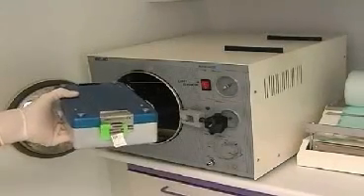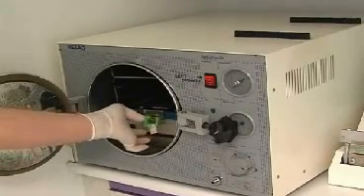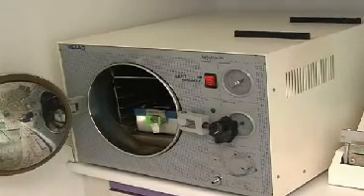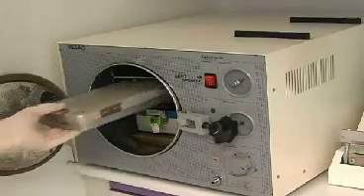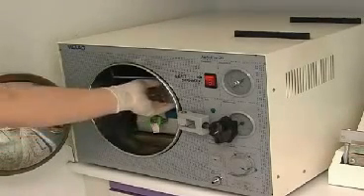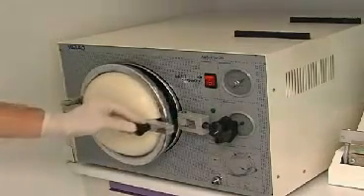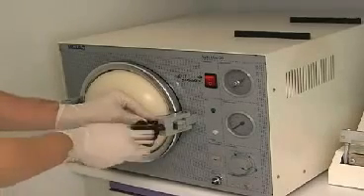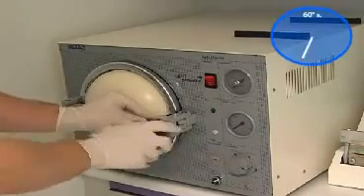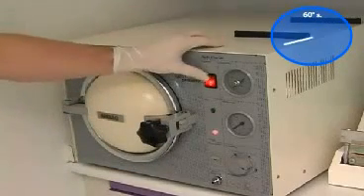Steam sterilization by heating in an autoclave is standard procedure in most hospitals and doctors' offices. You see the sterilizer being loaded with surgery containers holding sterile goods. The containers serve as storage until the next patient treatment. The materials to be sterilized are treated with overpressure for a certain period of time and at a certain temperature.